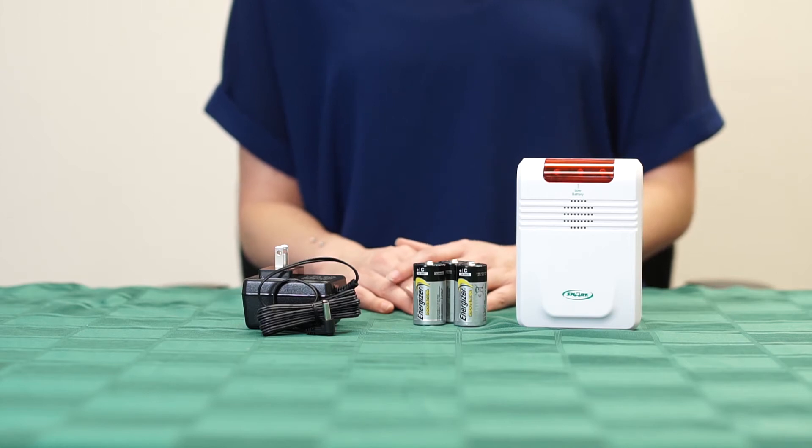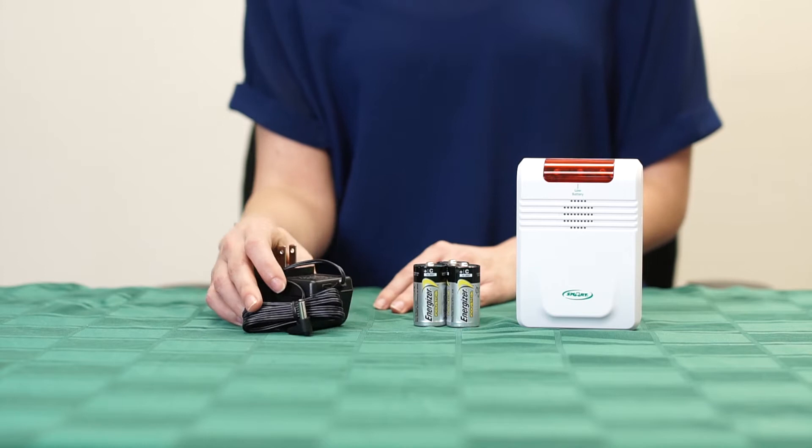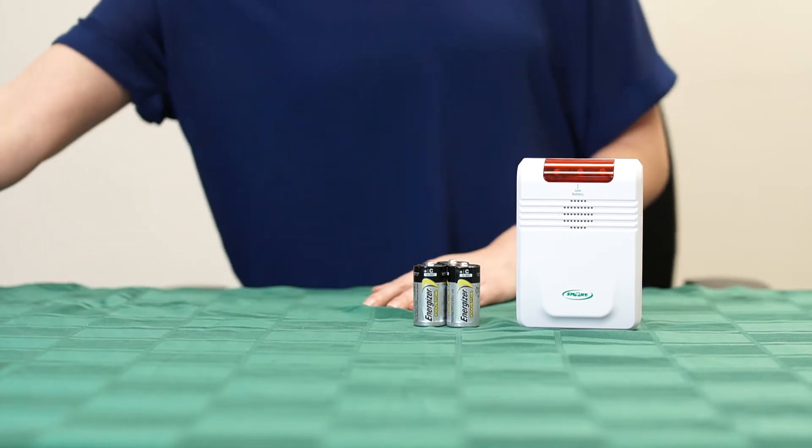To begin, we will need either three C-sized batteries or an AC adapter to provide power to the monitor. For this video, we will be using batteries.